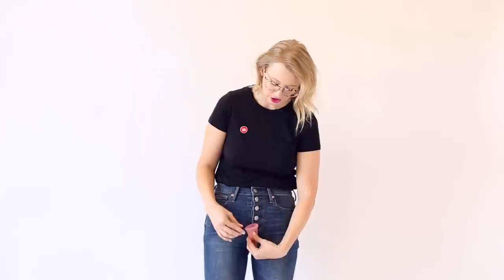You may be thinking that pinching the base is a disaster waiting to happen because the blood you've collected might spill all over you. But really, because it's inside of you as you pinch it, it doesn't make a mess like you would think.